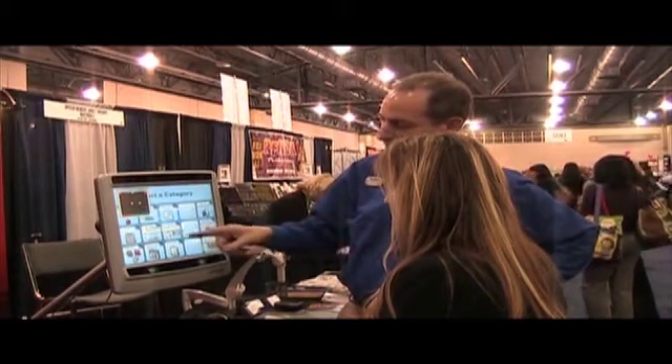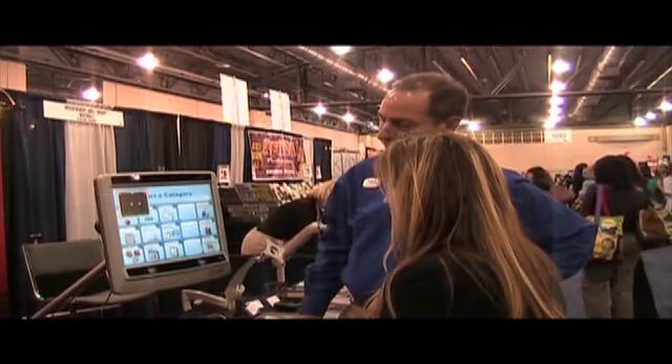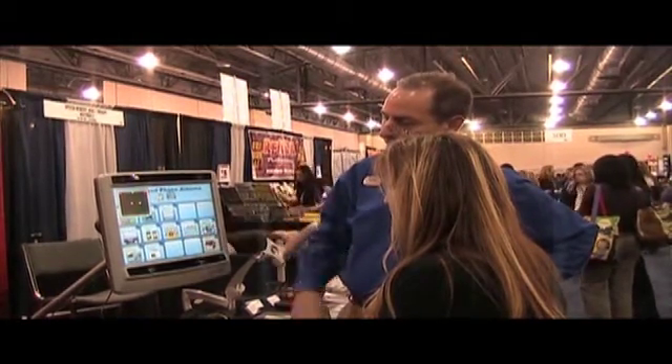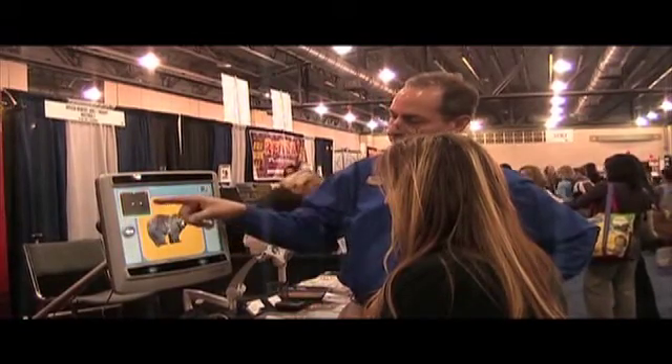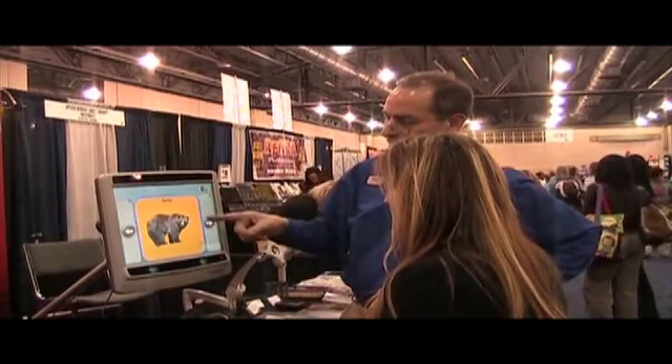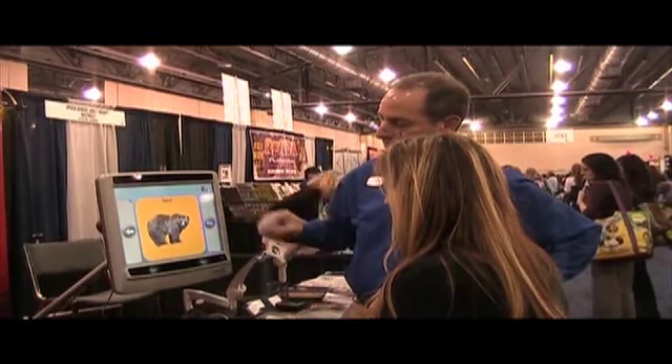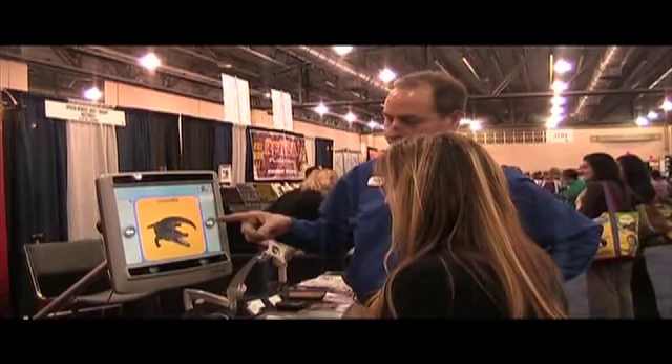To music. There you go. And look at the animal right there. And now we know that your eyes are there, so we'll just take that off. So look at the bear. And now look at this point right here, and it changes it to something else.